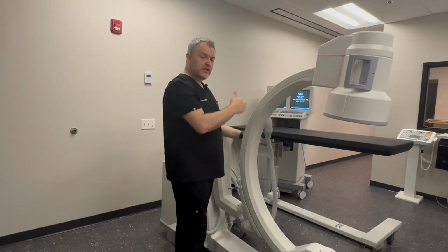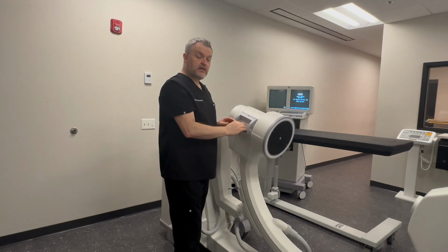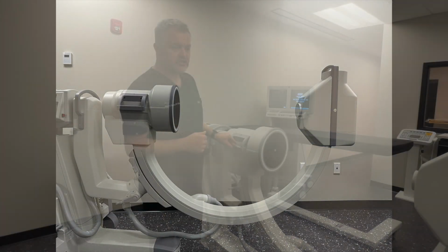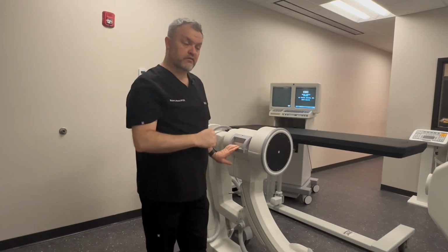But coming back, so to roll back, we can actually roll back into parallel to the floor. Typically that would be a lateral, but again, depending on patient position, we can't call this lateral, so this would be parallel to the floor.